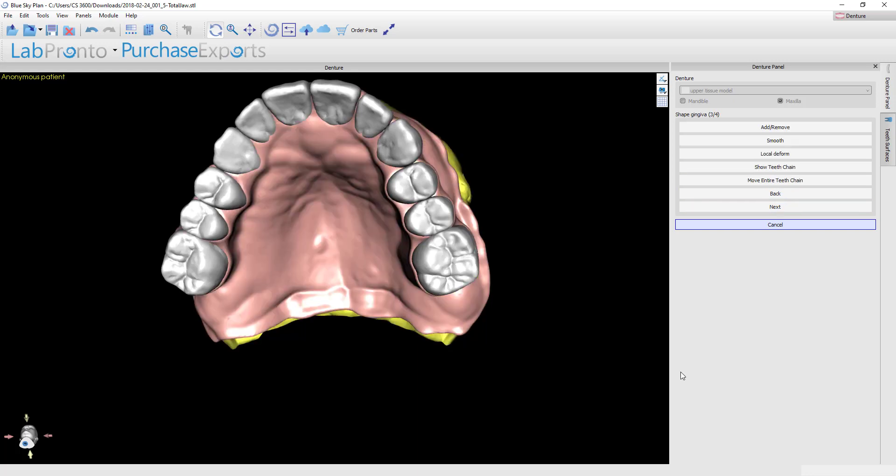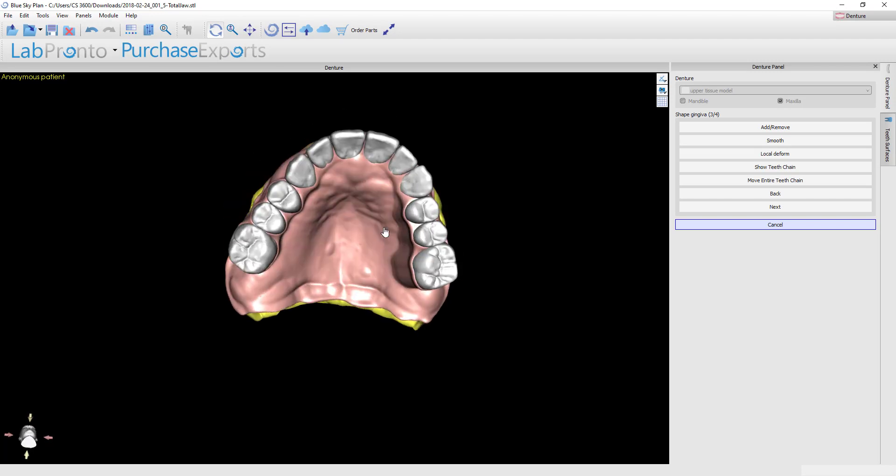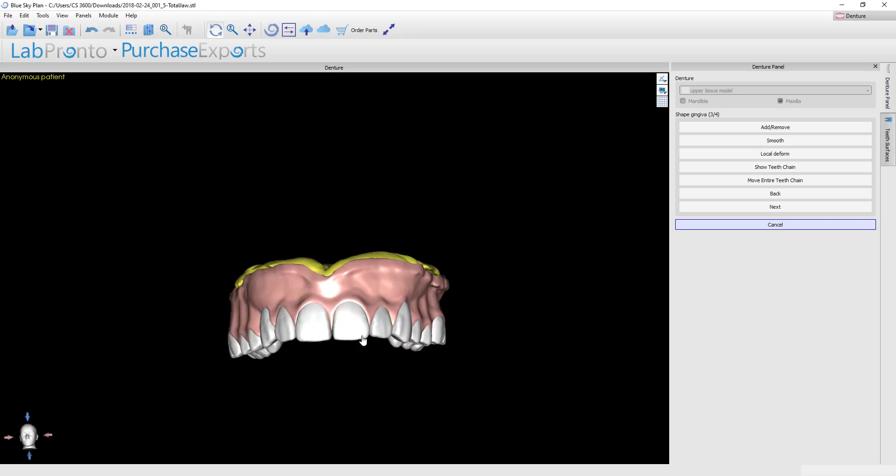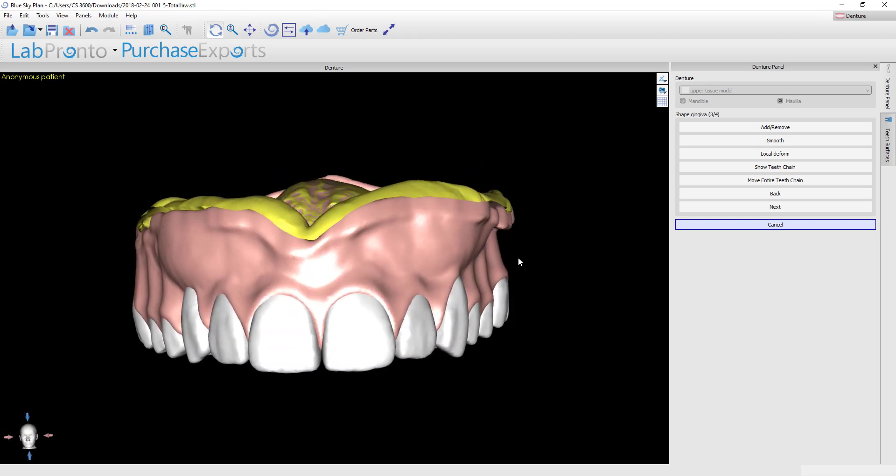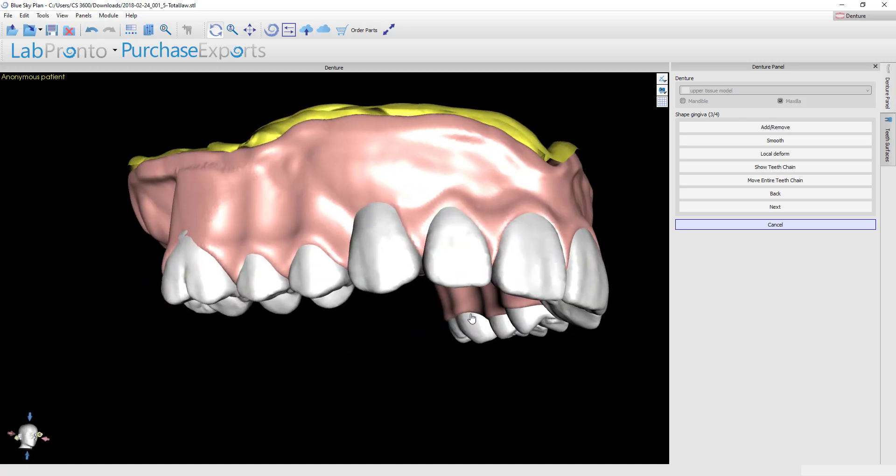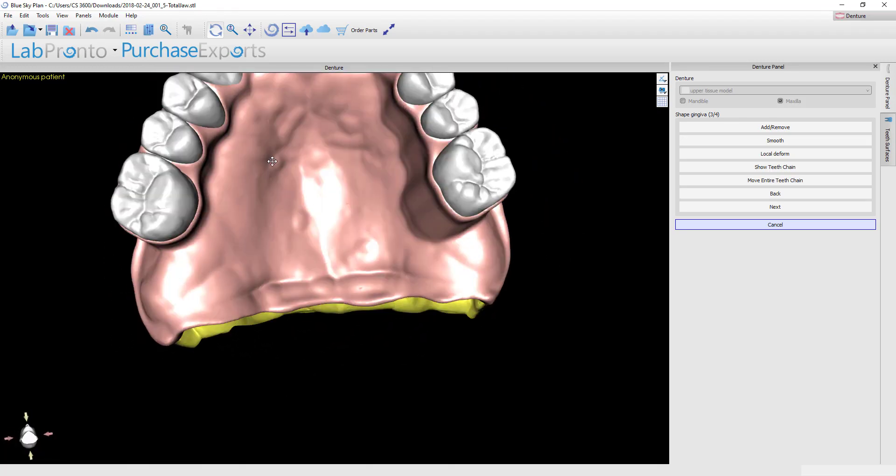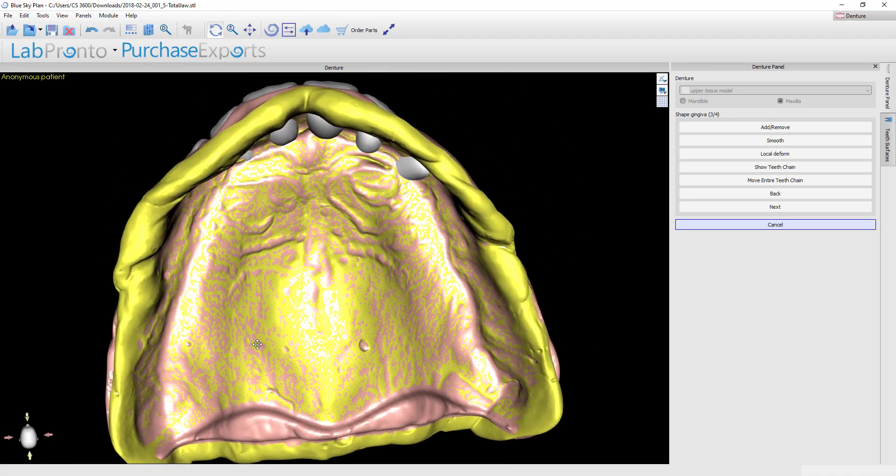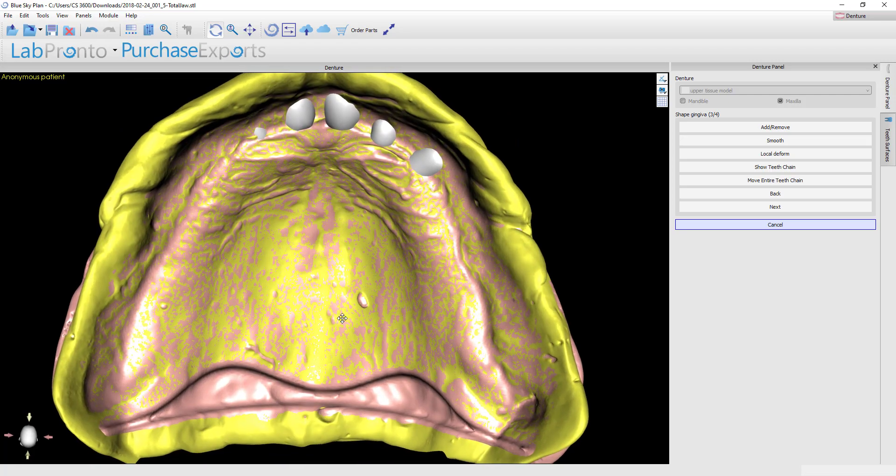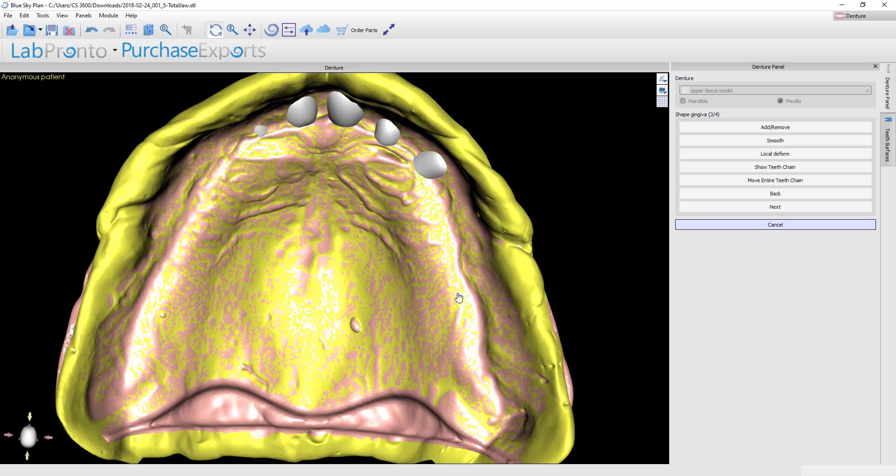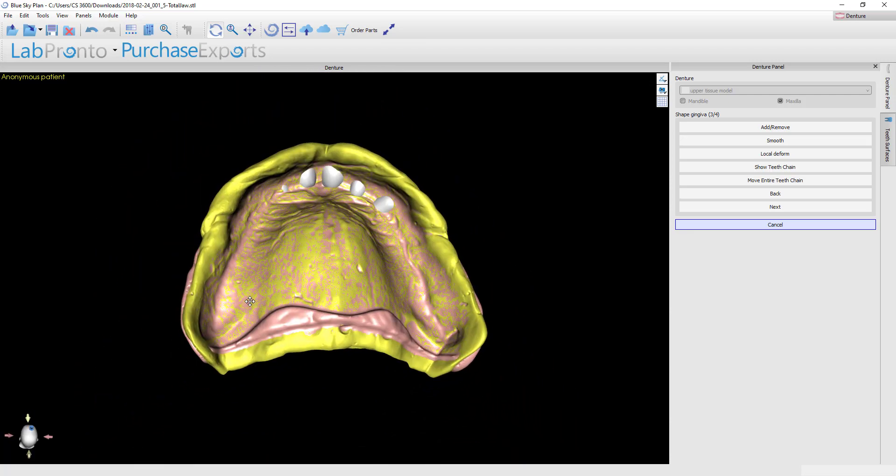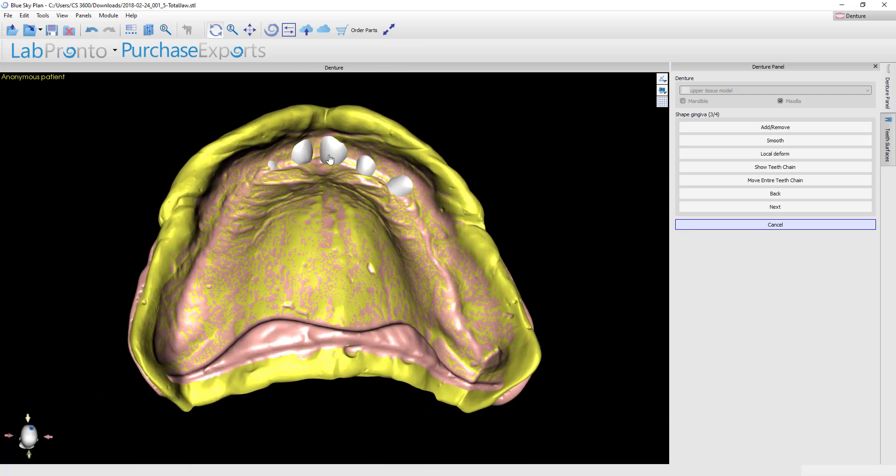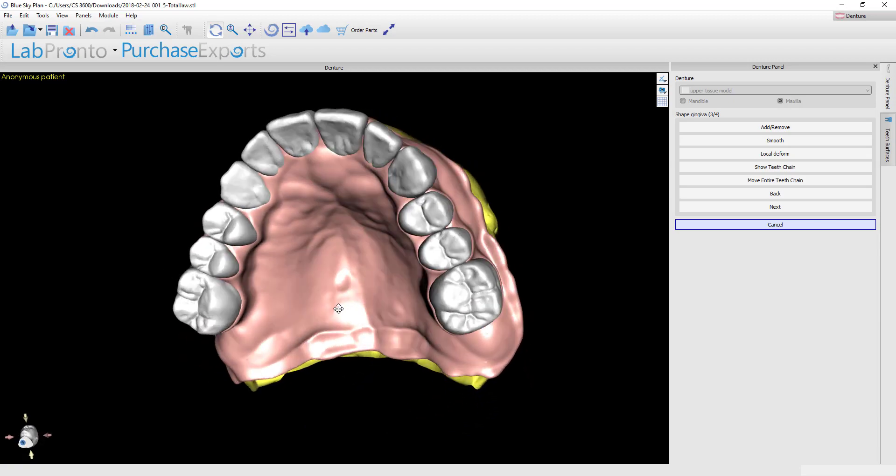Here you see the initial denture base proposal. You've got just a three millimeter thickness of wax or acrylic, whatever you want to refer to the gingiva as, built down onto the model base. You can see the internal fit here, how the surfaces are very closely stippled together indicating a very accurate fit. Right now you can still see that there's teeth penetrating through, but we'll deal with that in the next step.